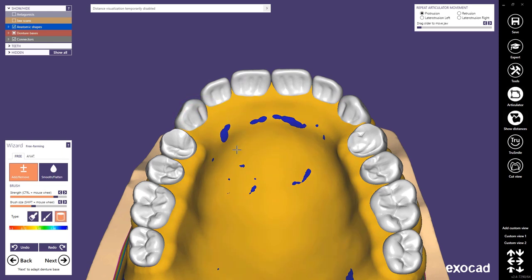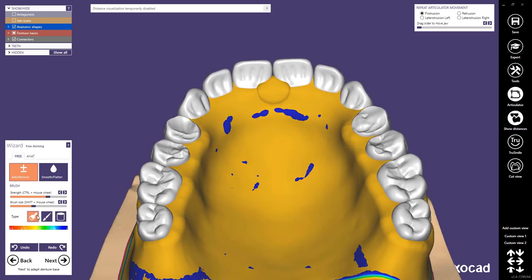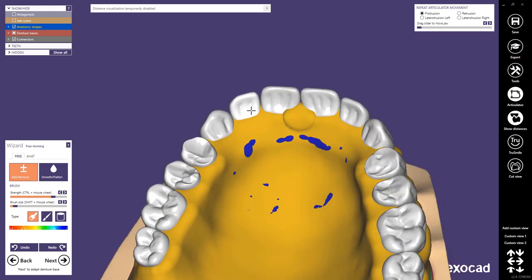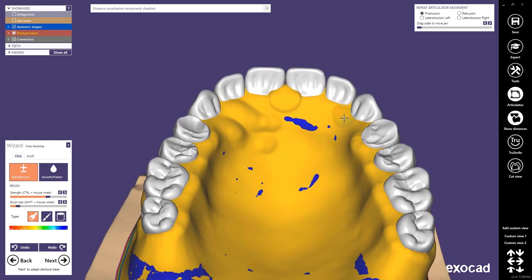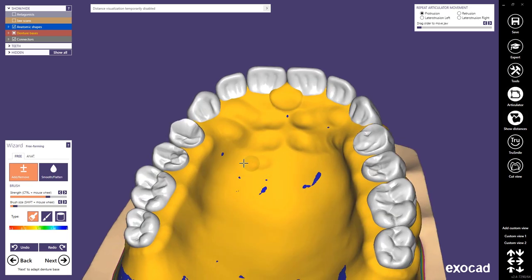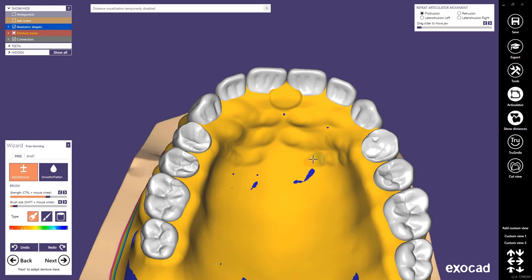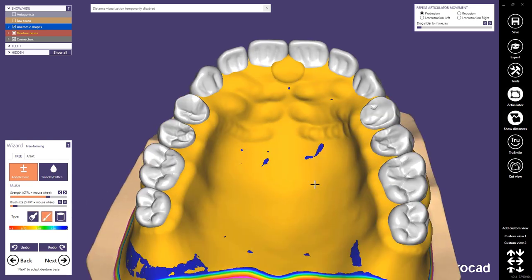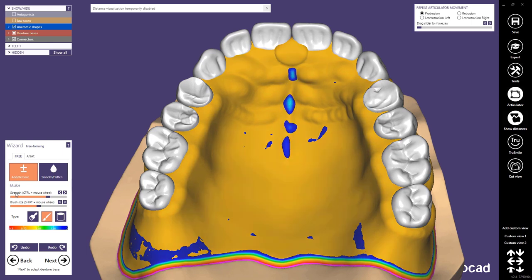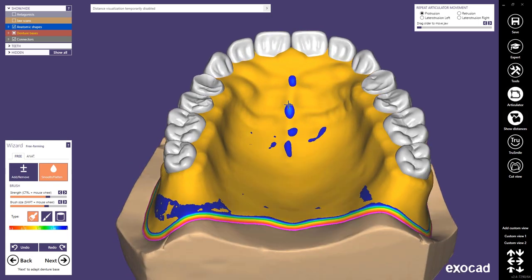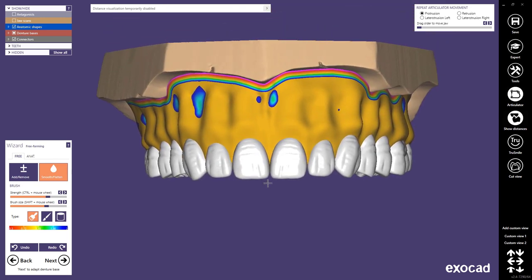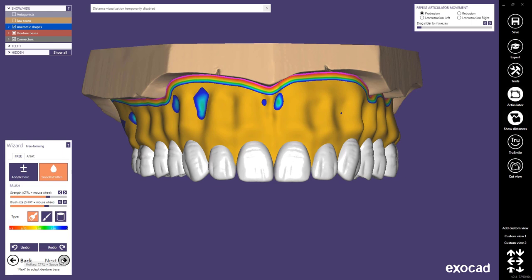Then using the cylindrical tool and adding material I add an over-designed version of my papilla. Please keep in mind that this area isn't as important to design in detail because the insertion axis of the teeth will cut away material here. Using the add tool with the standard brush I can add a simple version of my rugae. Using the point of knife tool with removing I can simply add a fossa. And again I'm smoothing the whole area to give it a more natural look. I'm happy with the outcome of my freeforming so I'm going to the next step.